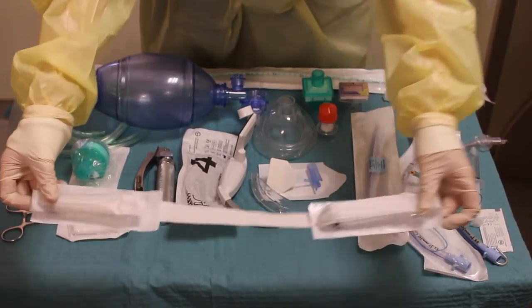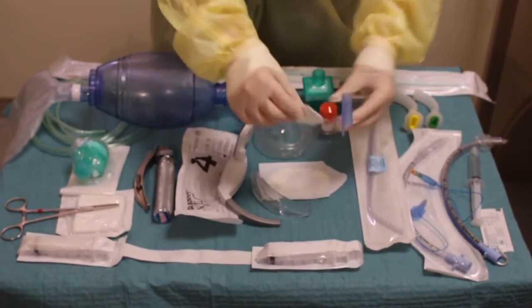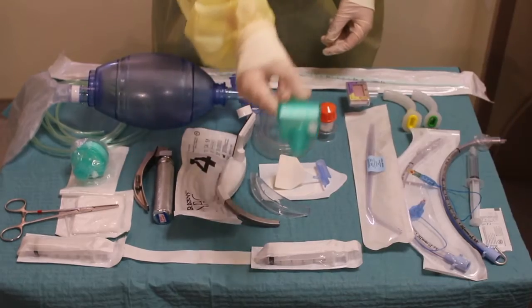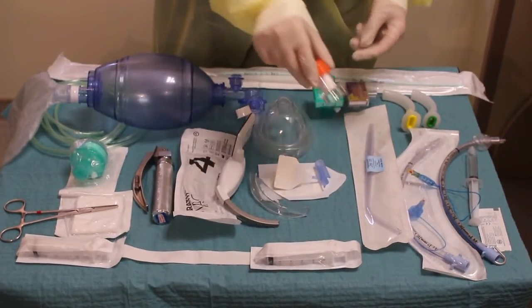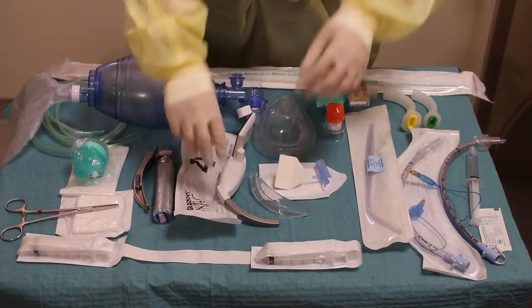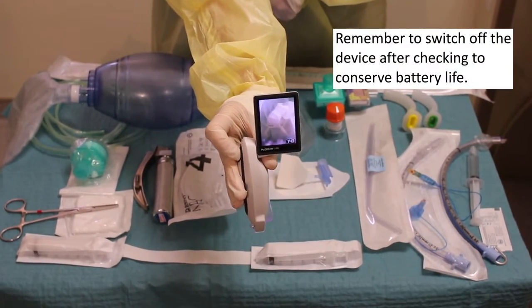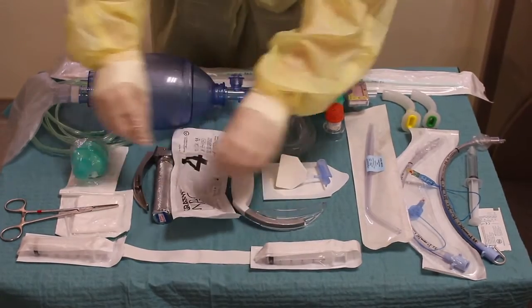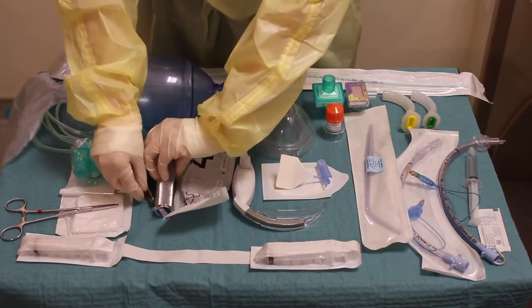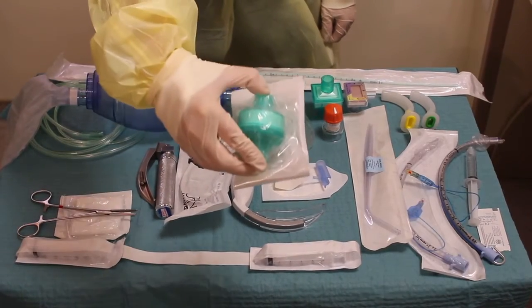Next is the surgical tape to help secure the ETT after it has been inserted. And here is the bite block to protect the ETT. We also have the colorimetric device to help detect CO2 and confirm position of the ETT. Here is the mechanical filter and also the PEEP valve. By rotating the top of the PEEP valve you can adjust the PEEP value. And here we have the McGrath video laryngoscope. We are now inserting the blade and turning on the device, making sure that it's working well before turning it off.